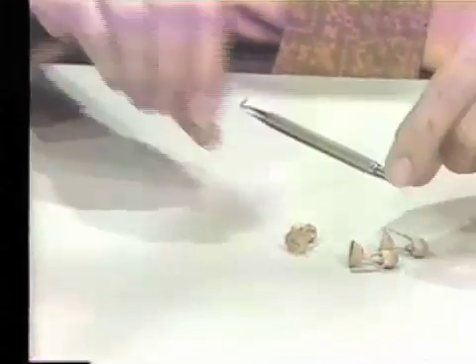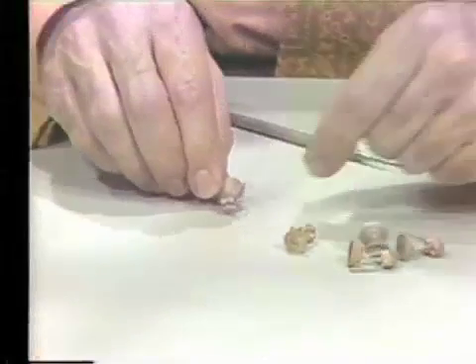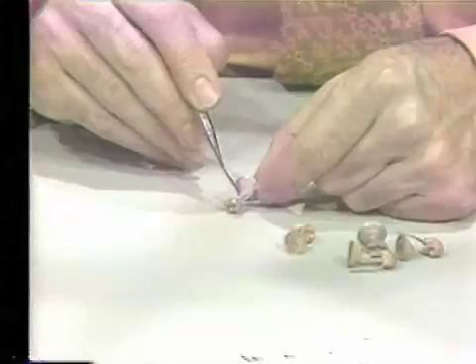In the next case, we used one single sprue of a much larger size without any vent, and one can see that there is again a poor surface. Finally, we have gotten acceptable castings by using both a vent and a large sprue.